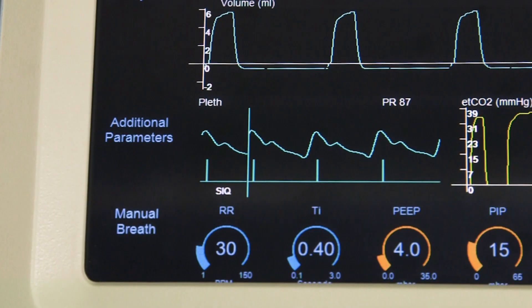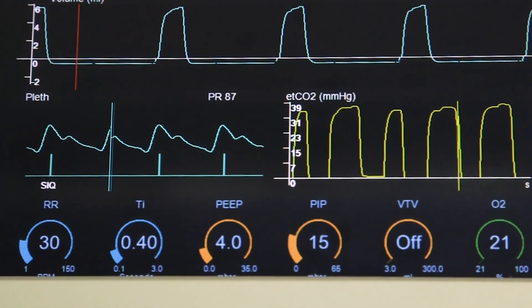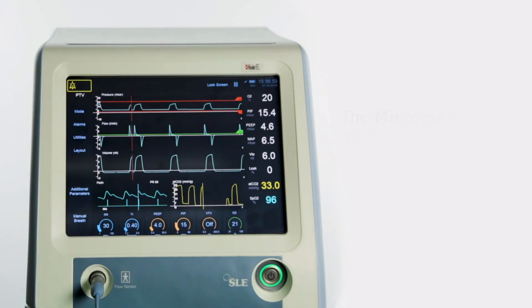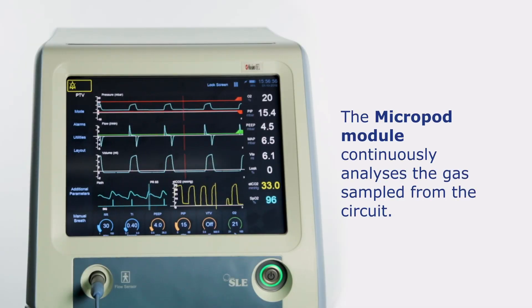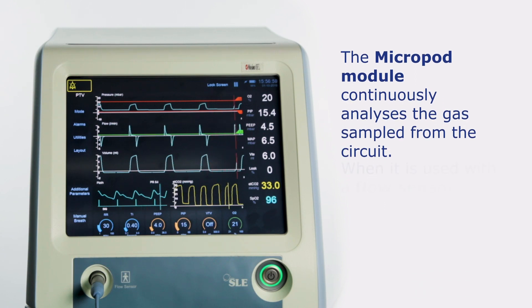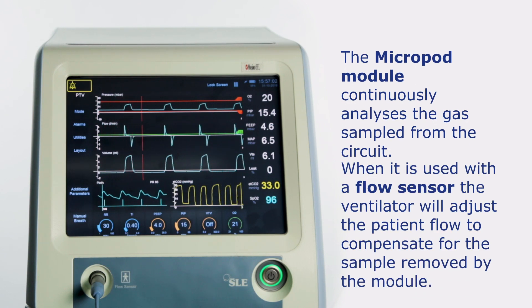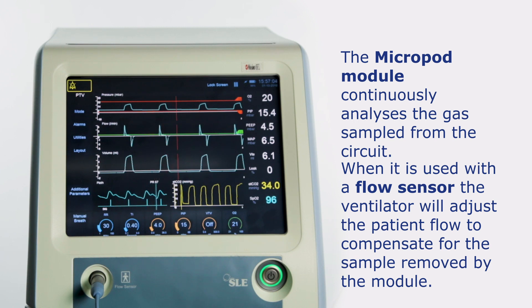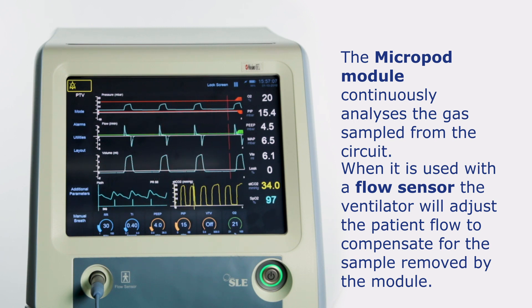If SPO2 is also being monitored, the waveforms will share the bottom channel. The Micropod module continuously analyzes the gas sampled from the circuit. When used with a flow sensor, the ventilator will adjust the patient flow to compensate for the sample removed by the module.